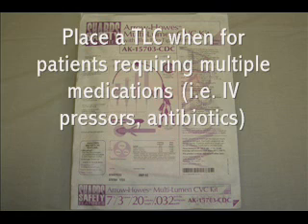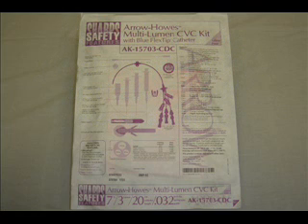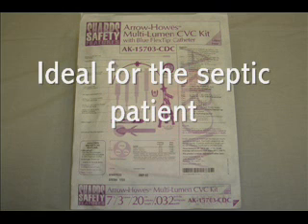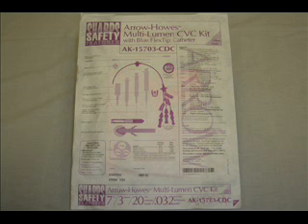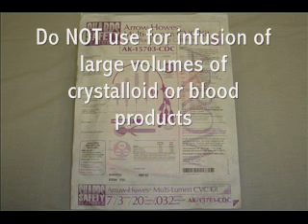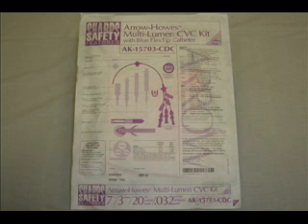The triple lumen would also be ideal for a patient receiving IV pressors. For example, a septic patient would be an ideal recipient of a triple lumen catheter. The triple lumen should not be placed in any patient who needs volume resuscitation. For example, a GI bleeder that's hypotensive or a trauma patient should not receive a triple lumen catheter. Instead, these patients should receive a cordis catheter, which we'll discuss next.